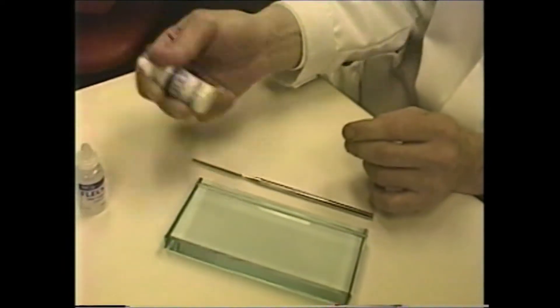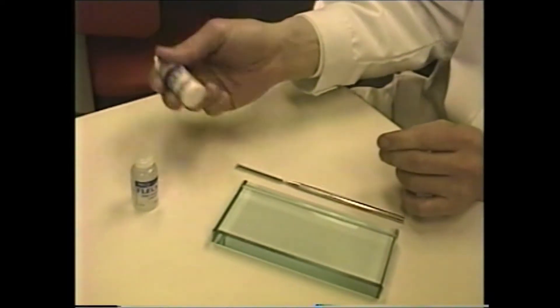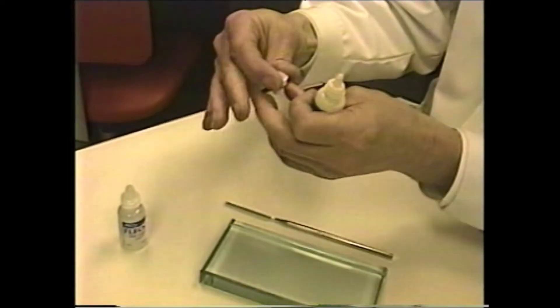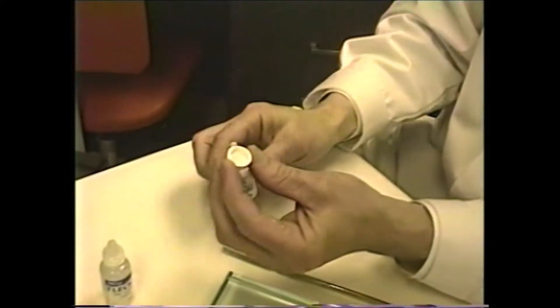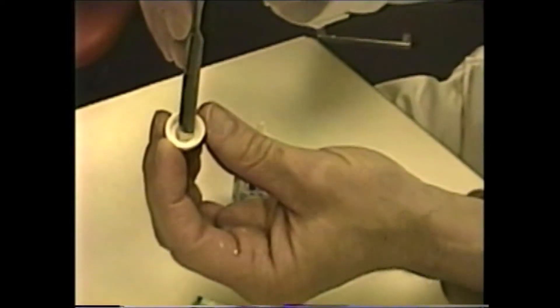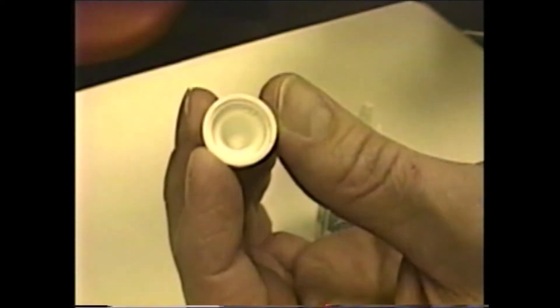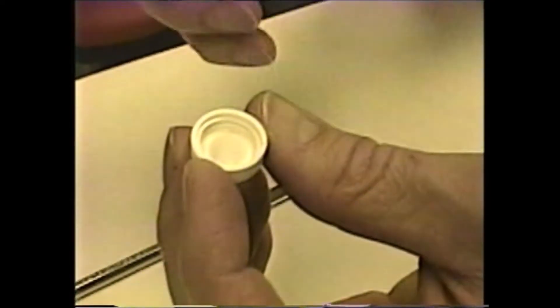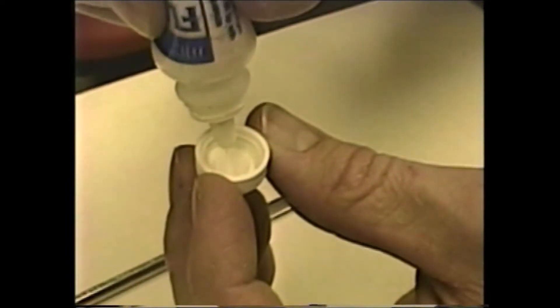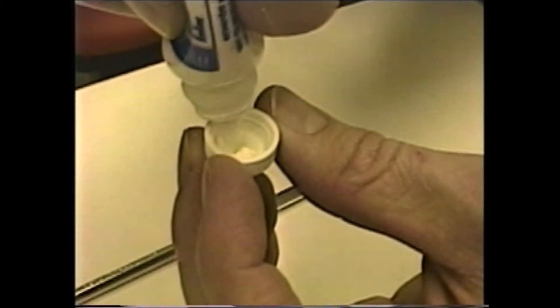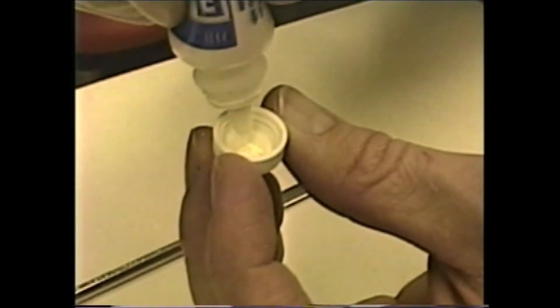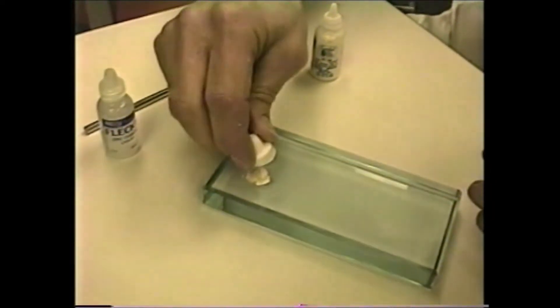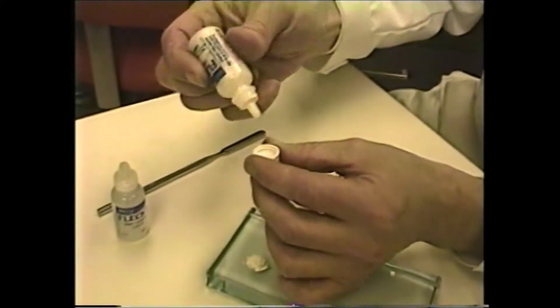Initially, no matter what one mixes where there's a powder, you should fluff the powder to some extent so that it's not too dense. The next step is to place two capfuls. It's not really an entire capful, it's to the top of the dome where it becomes flat internally. It's just to the top of the cap that will fill two levels of powder. I'm squeezing the powder, and it's a little hard to do it exactly because it doesn't lie flat, but you can get awfully close. There's one capful, and then a second capful.